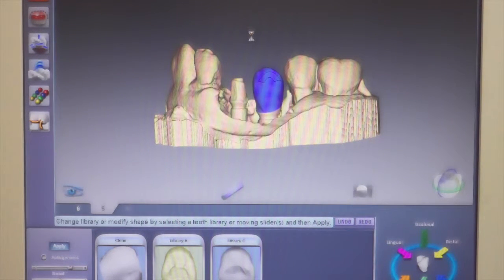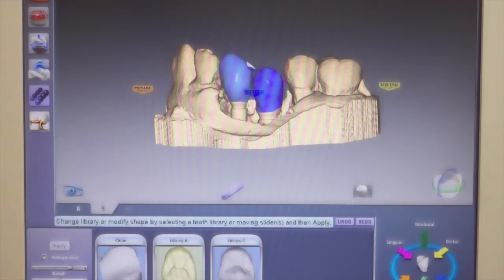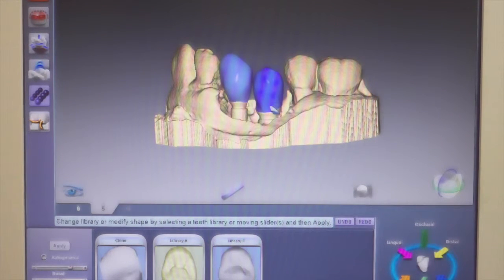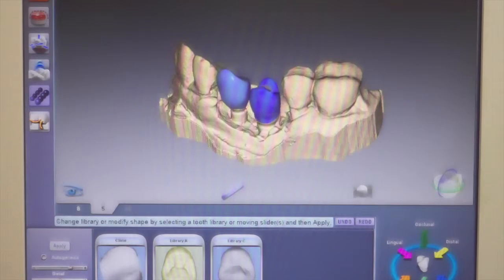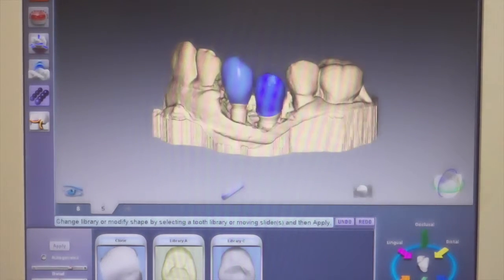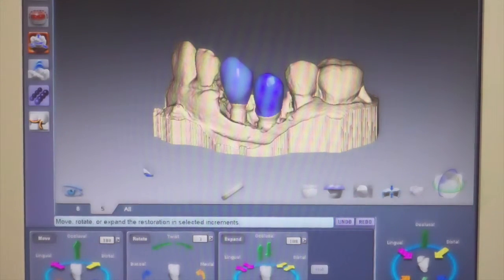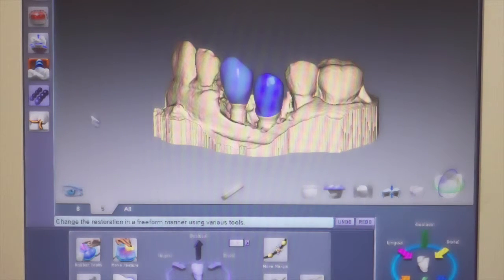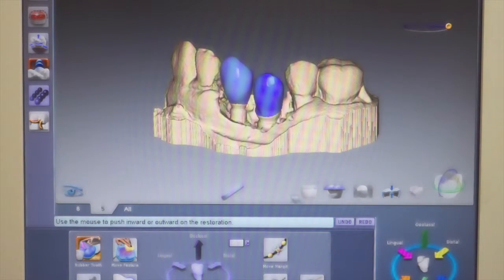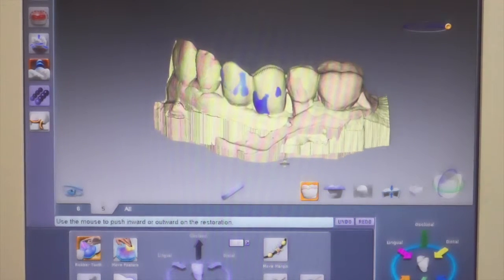This design I've already finished number six, so we're just going to focus on number five. Now it's time for inflated tooth. Notice here first of all that we haven't applied any clone library to this abutment — it's purely applying a small tooth so that we get a good smooth proposal that we can now inflate. The tools we use for inflated tooth are slice plane, rubber tooth, clone overlay, and smooth tooth. I found that incremental tool changes do not work as well as free-form using rubber tooth for inflating a tooth. So what we do is we go under rubber tooth, we go into our clone overlay, and we start inflating our tooth.